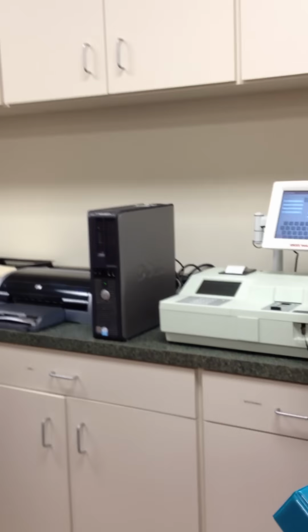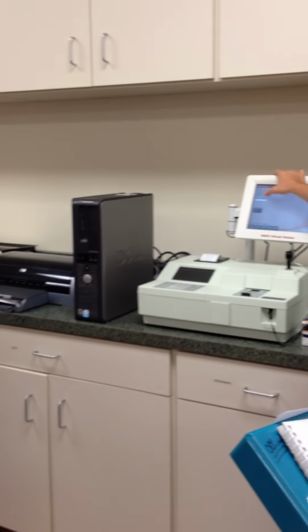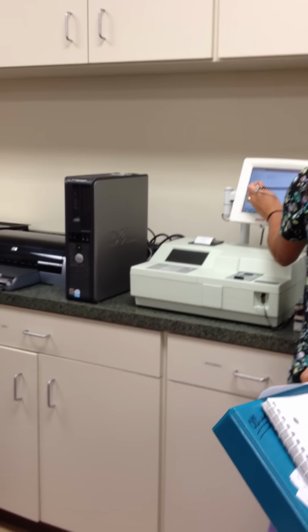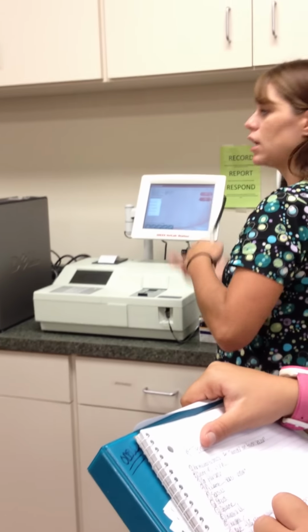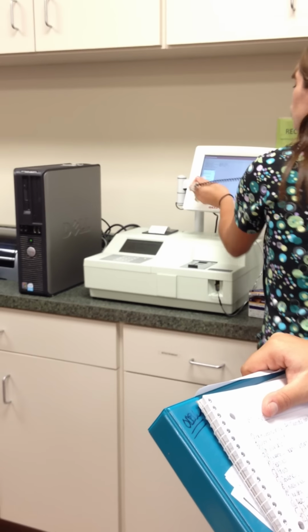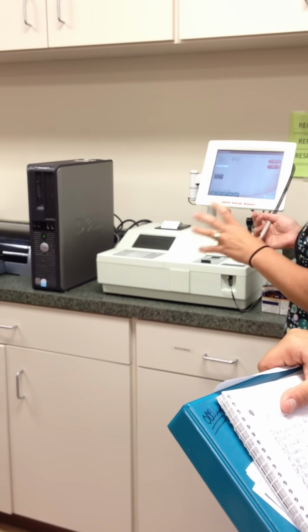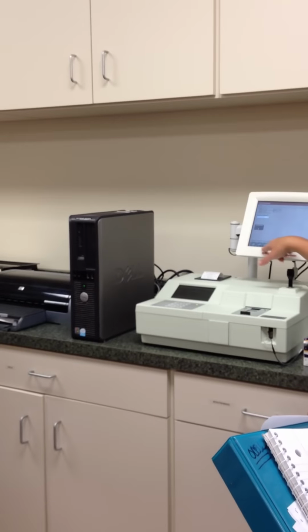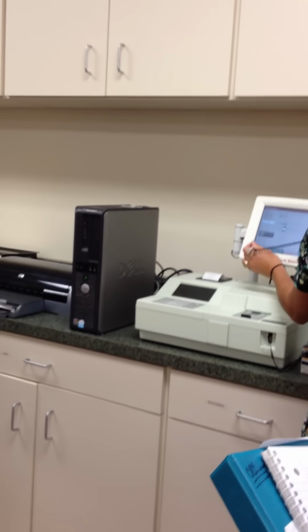Okay? Next. Okay, so on our next screen, it's got all your patient information up here, and then it's asking for the reason for testing. So most likely for surgery, it's going to be for routine surgery, okay? If they're sick and they're here, then you can choose monitor, whatever you're running it for, okay? And then we also have to choose the machine or the test that we're running. So down here on the bottom, we have in here the vet test, and then there's a bunch of snap tests. There's machines that will also read snap tests. We just have our vet test hooked up to it, so we're going to hit vet test.